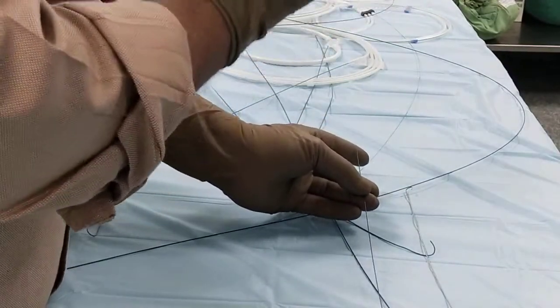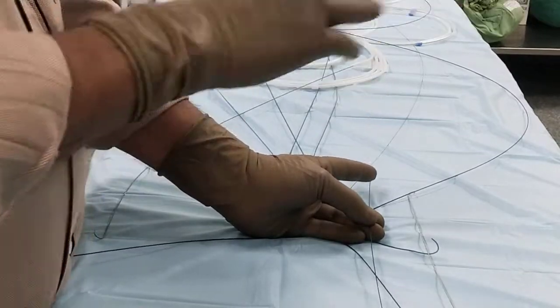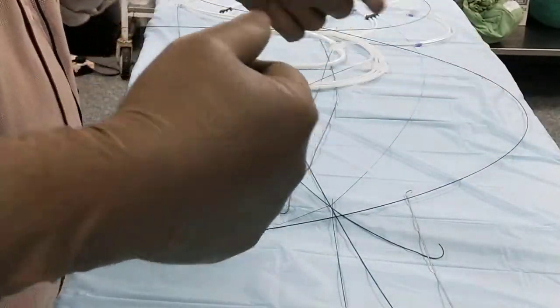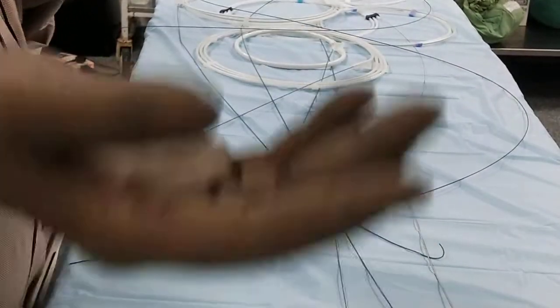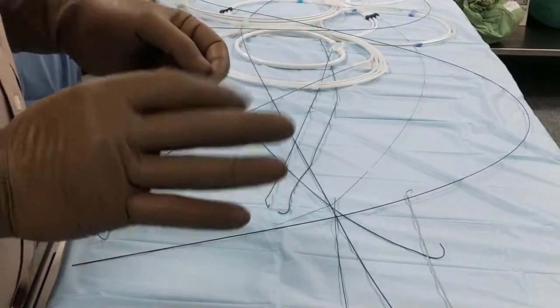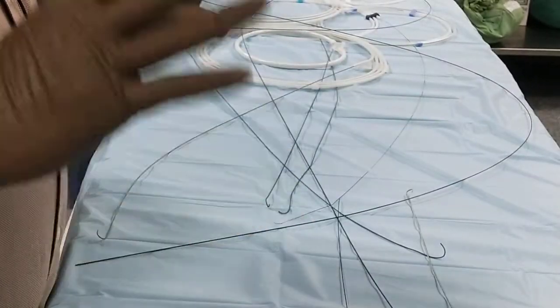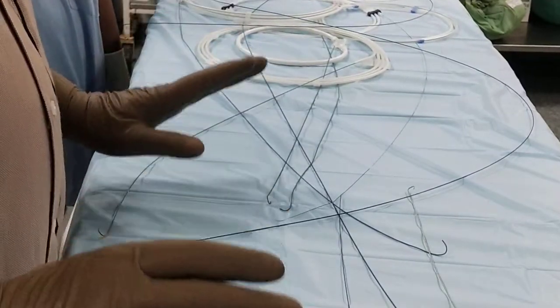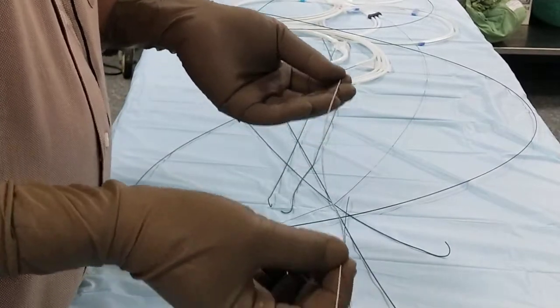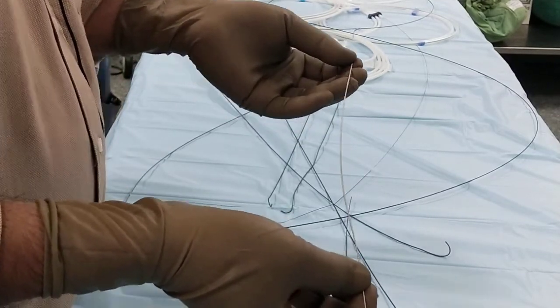Our aim is to go to the heart — the cardiac coronary arteries or the various chambers. You can take any access: radial, brachial, or femoral. Wherever you can get an artery, you can get inside. In an emergency, you have to see which artery is palpable, more reachable, and more preferable. Generally, you will always use a bigger artery — the femoral artery. You won't go to the carotid or jugular straight away.